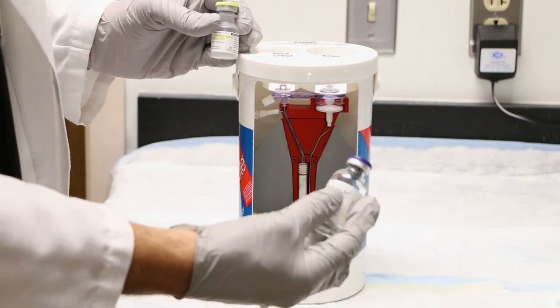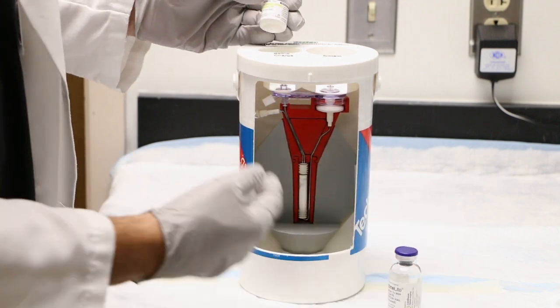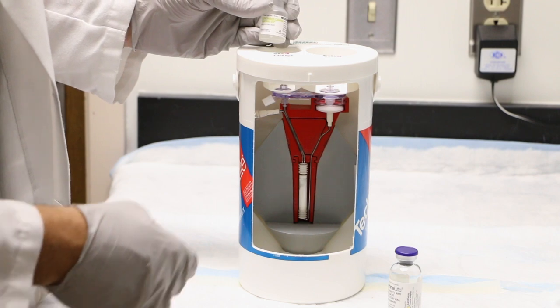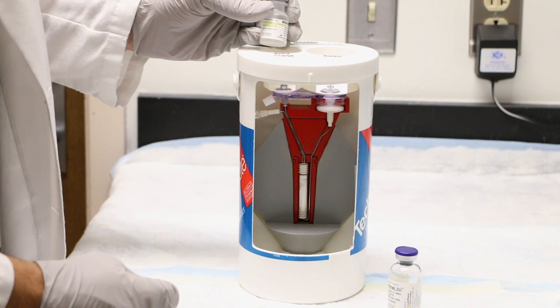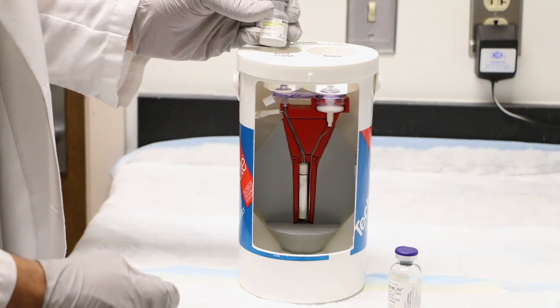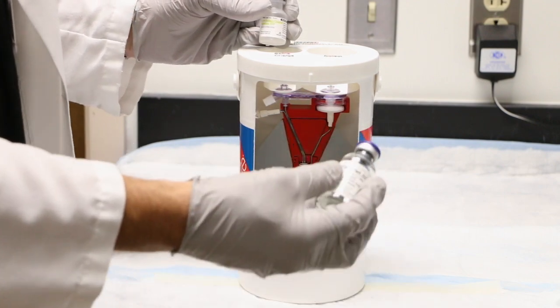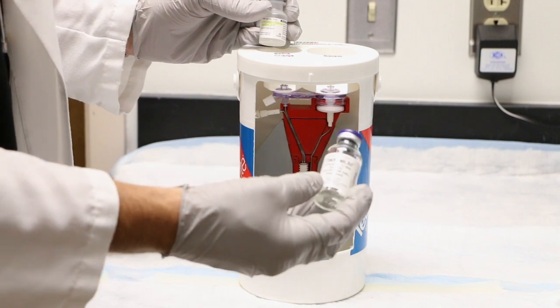We use an evacuated vial to pull saline through the system, and the normal saline, as it is pulled through the column, chemically separates the technetium-99M from the molybdenum-99, and in the end, we end up with radioactive saline in the form of sodium pertechnetate.